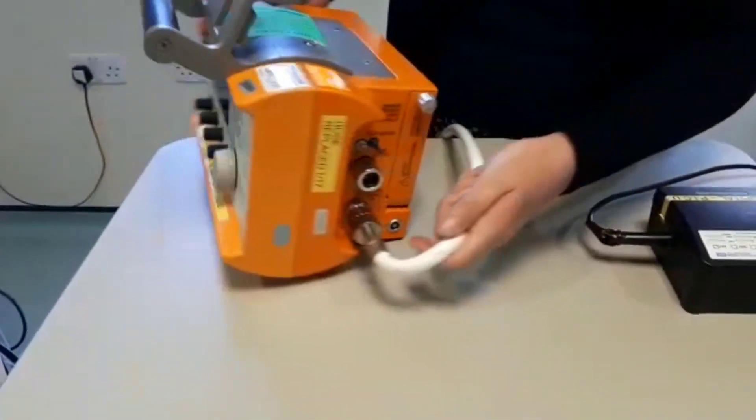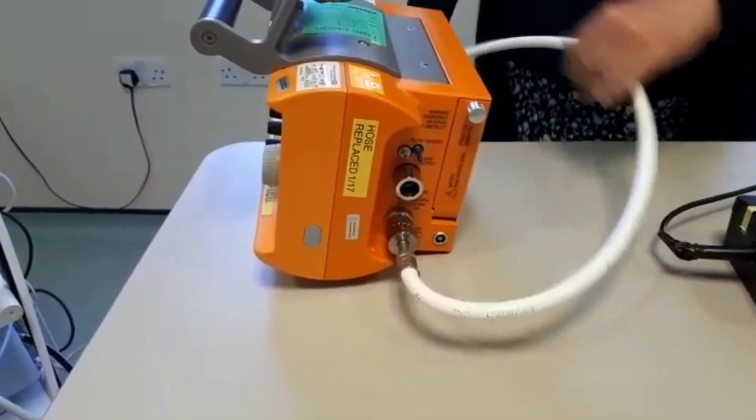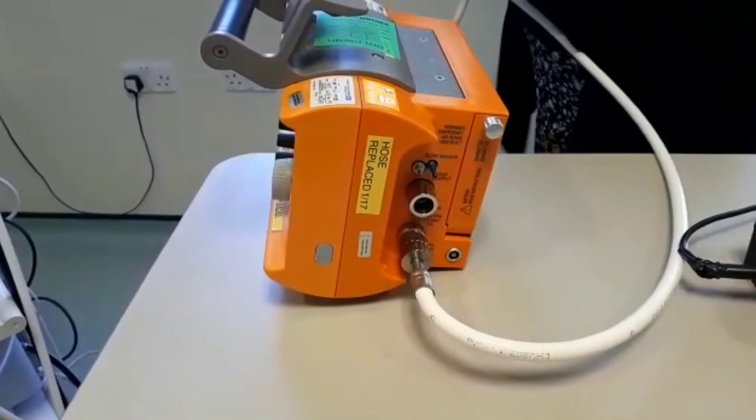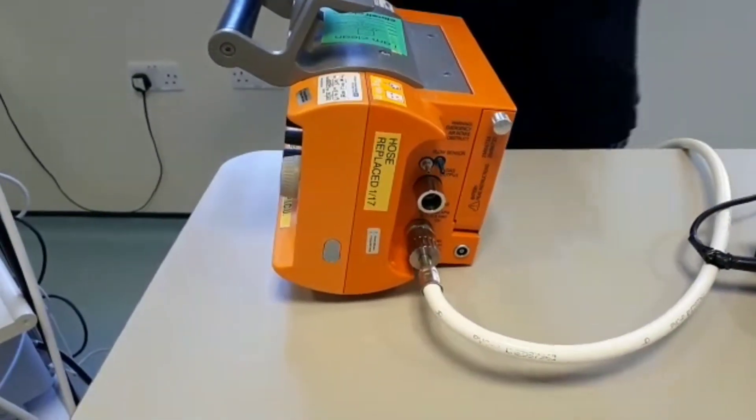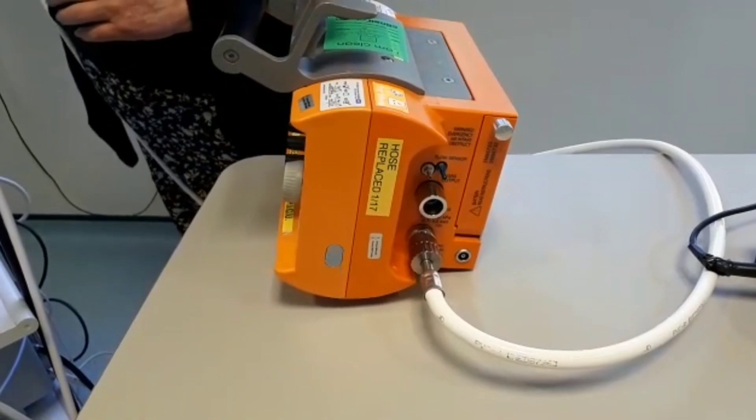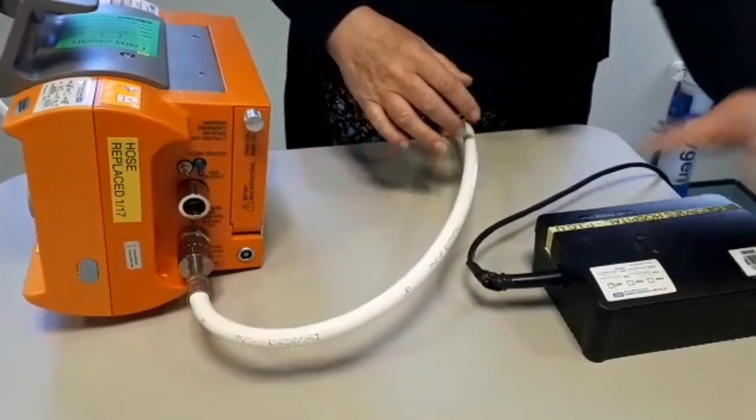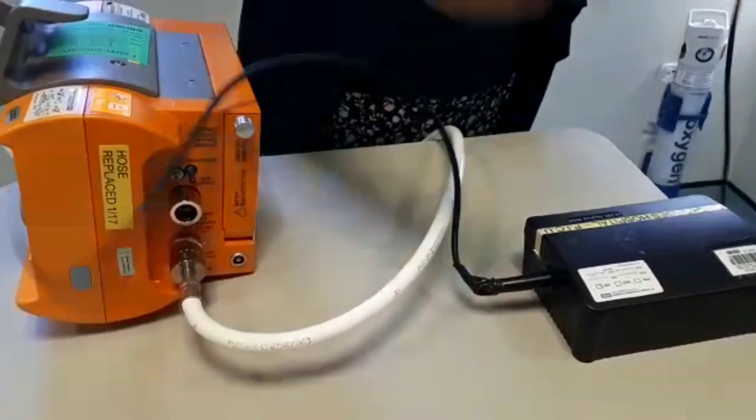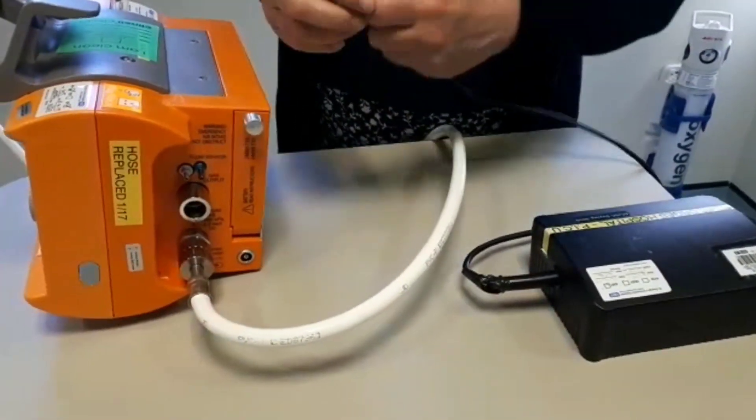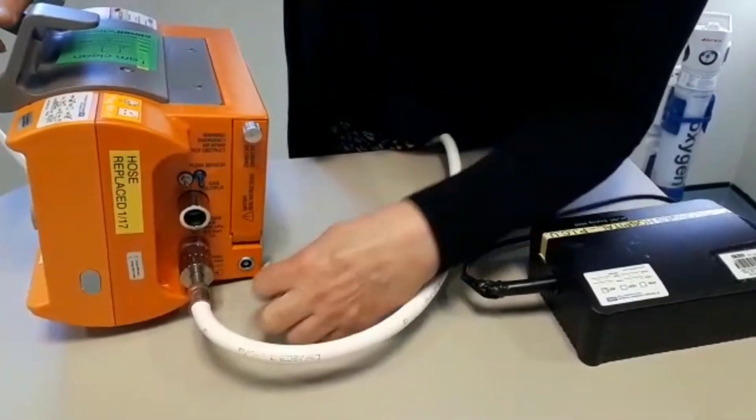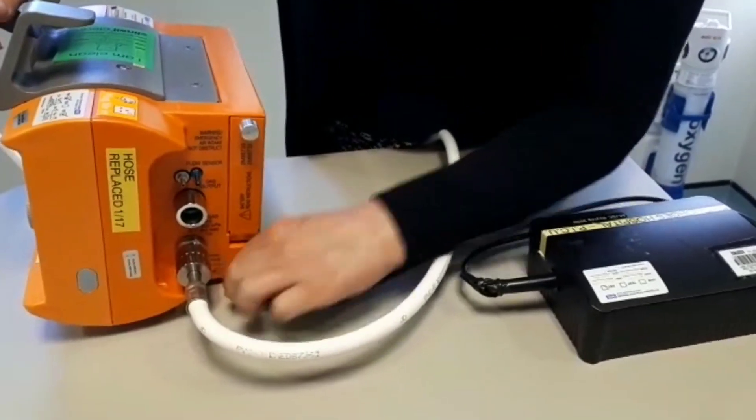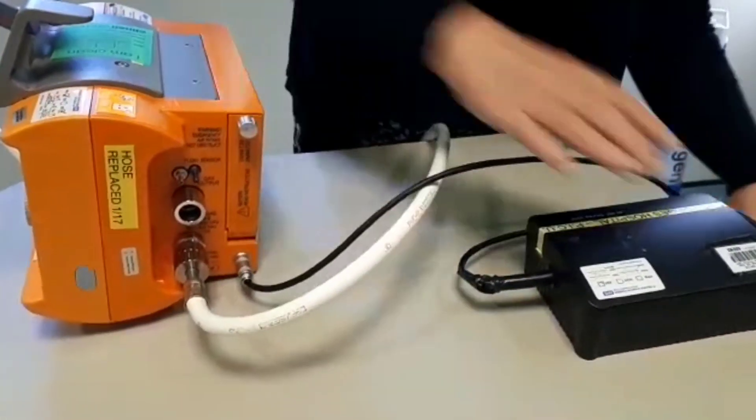This device only has an oxygen hose, so you need to plug that into your appropriate port. It has a mains transformer, so it needs to be plugged in just next to the oxygen port here. As you can see, and into the mains.